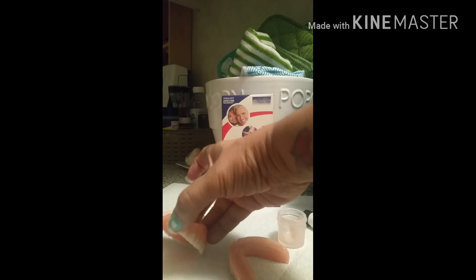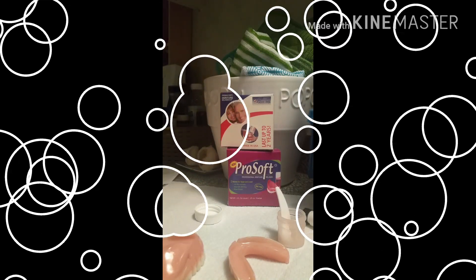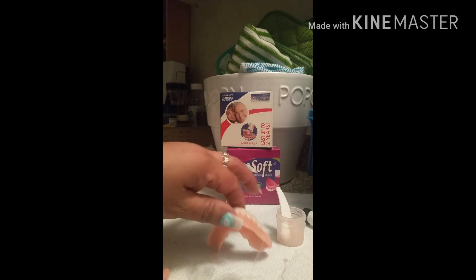You've got that set time to get the impression of your gums. I'm not going to play with this much — I'm getting it in and pausing. Okay, pulling it out now — it's been three minutes. Remove the reline denture from mouth.